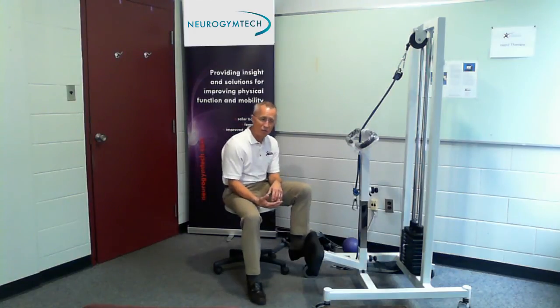Your choices for people who can't stand are: you can do leg lifts with weights off the plinth, you could lift the plinth so the person starts higher, you could put a therapy belt on them and assist them to stand, or you could have them in parallel bars or on a wall railing lifting themselves to stand. But none of those executes all the correct neurologic pathways required to stand.